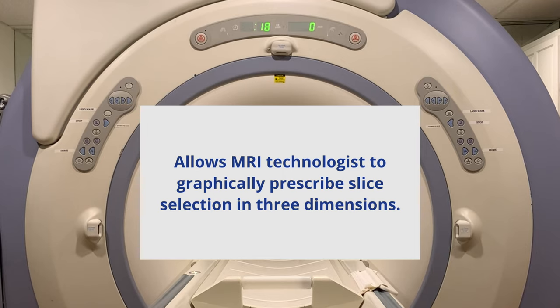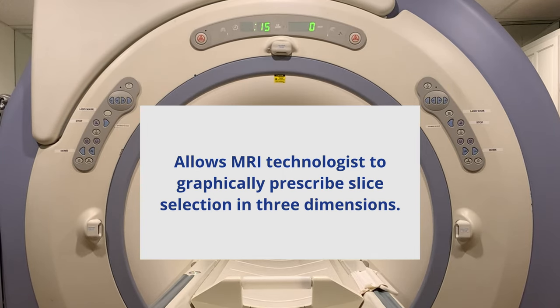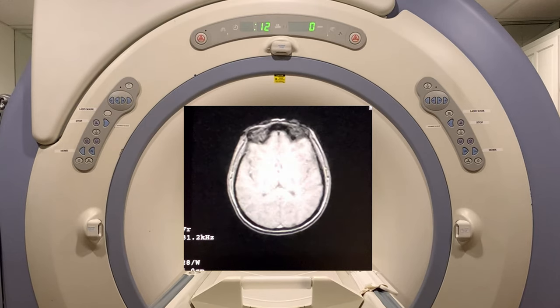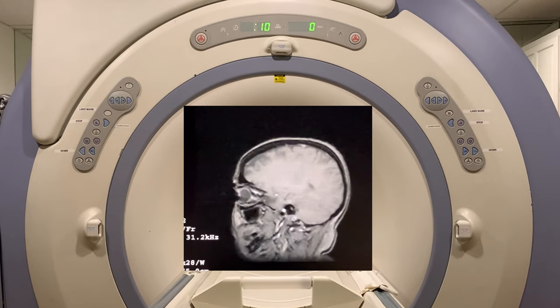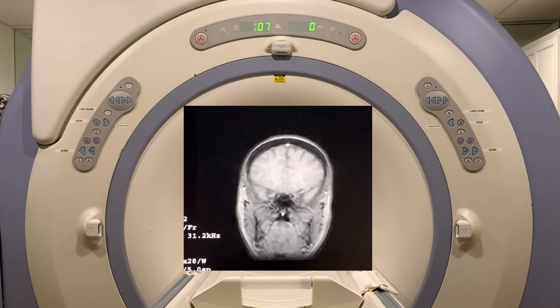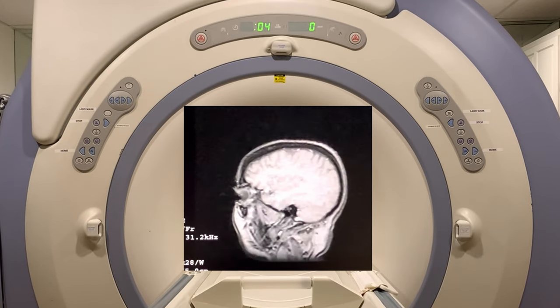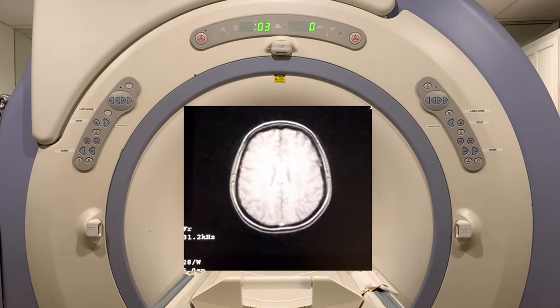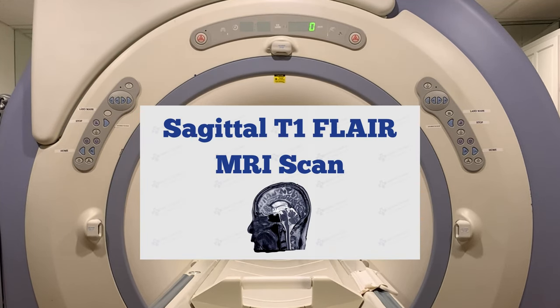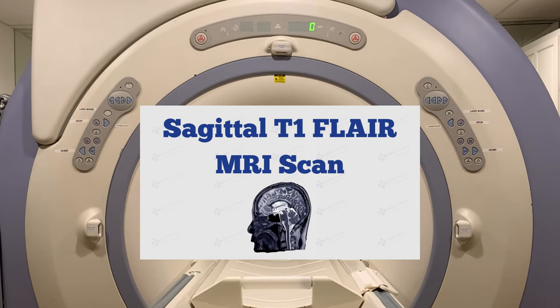The three-plane localizer produces reference images in the axial, sagittal, and coronal plane. MRI technologists use the images produced to plan the slice selection in the series to follow.